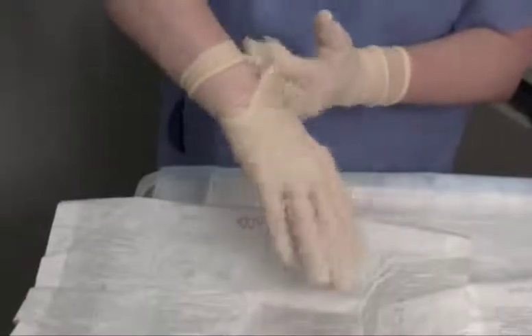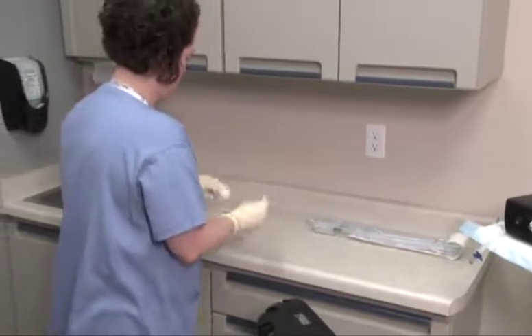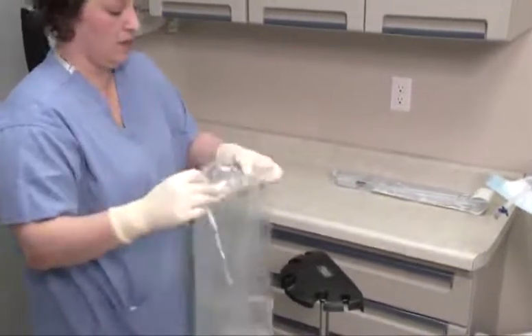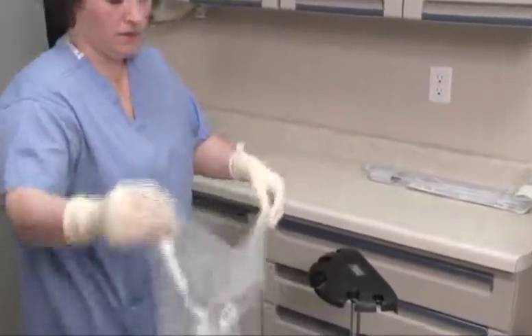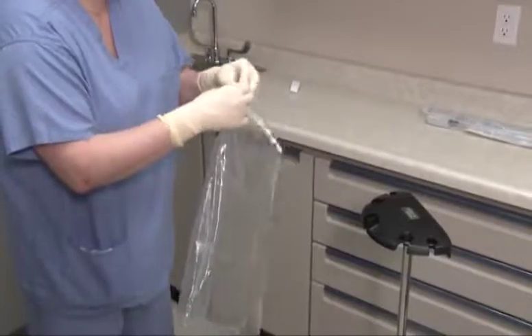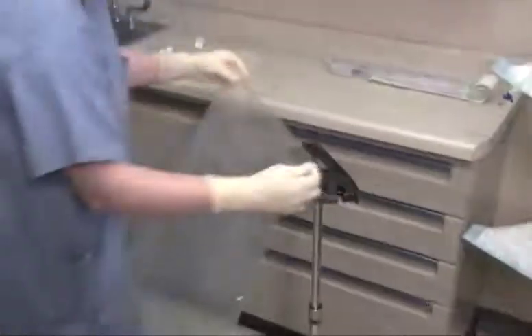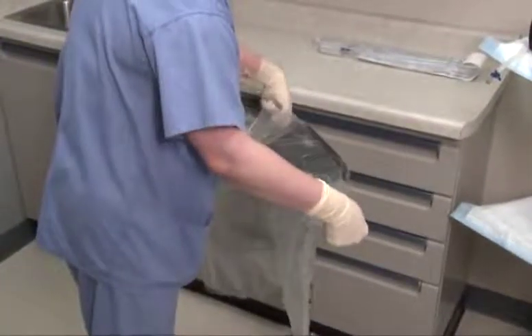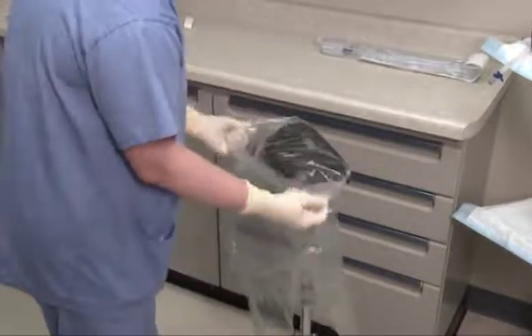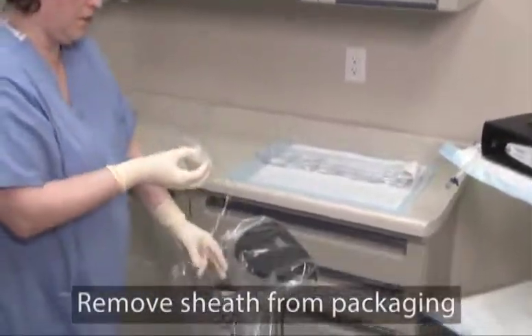Put on two pairs of sterile gloves. Remove the drape bag from the tray and open the bag to create depth for the later placement of the sheath. Remove the adhesive strip backing and secure it to the back of the installation stand. The adhesive backing can be folded over onto the back of the bag on either side of the table to ensure that it does not stick to any instruments. Carefully remove the sheath from the package and place it into the installation stand.